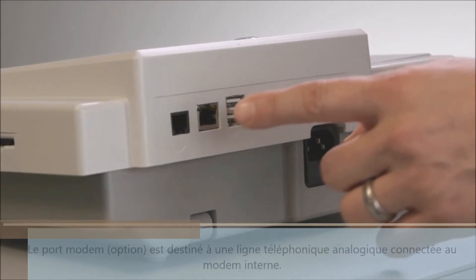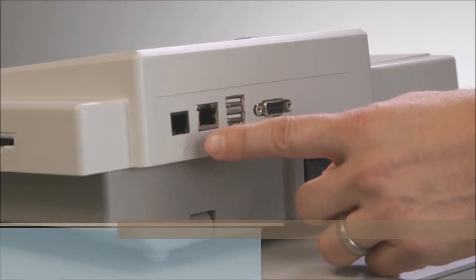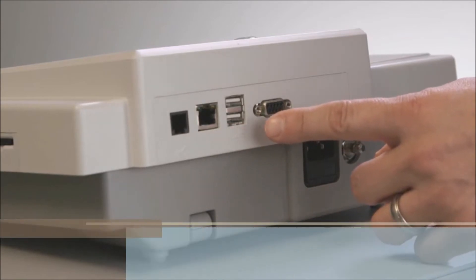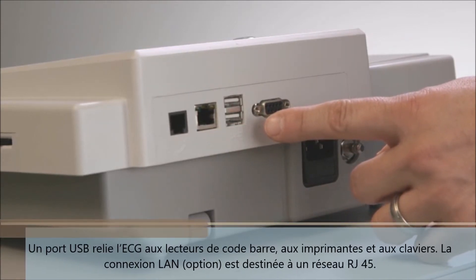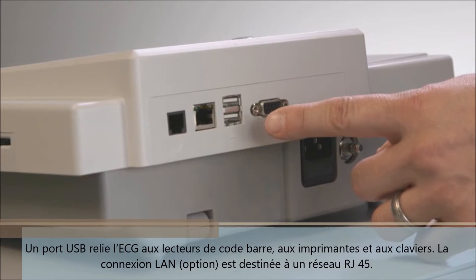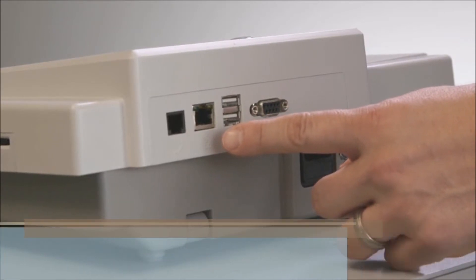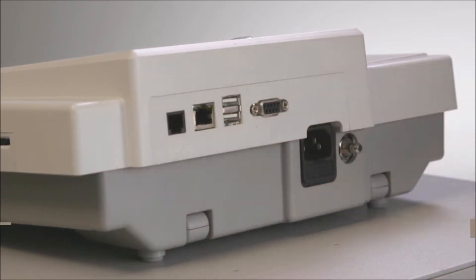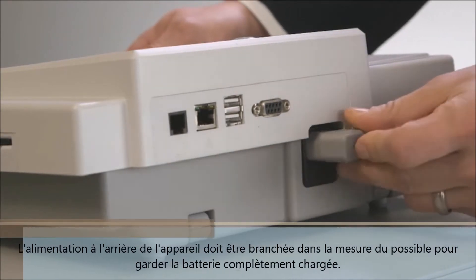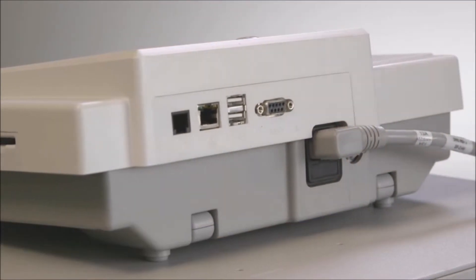The modem port is for an analog phone line that connects to the optional internal modem. A USB port connects barcode and magnetic card readers, laser printers, or keyboards, while the LAN connection is for an RJ45 network. The power connection at the back of the unit should be plugged in whenever possible to keep the unit's battery fully charged.